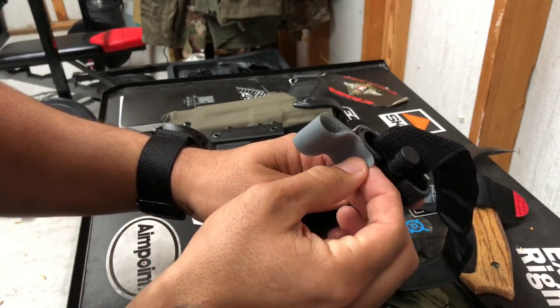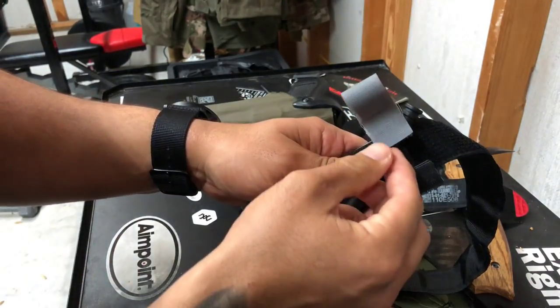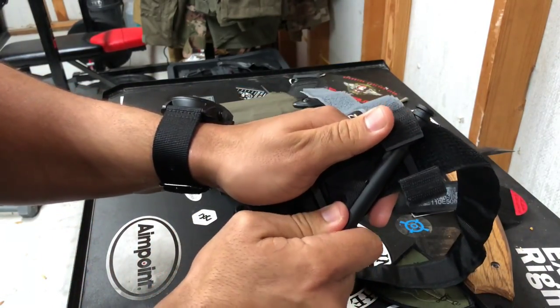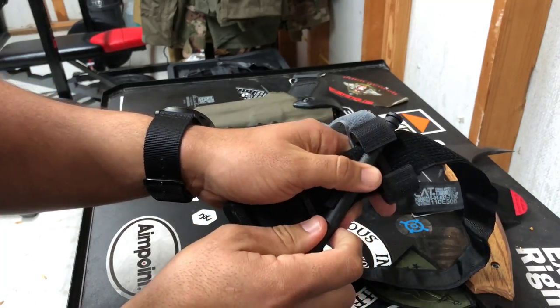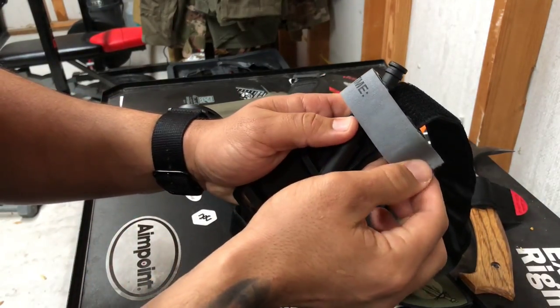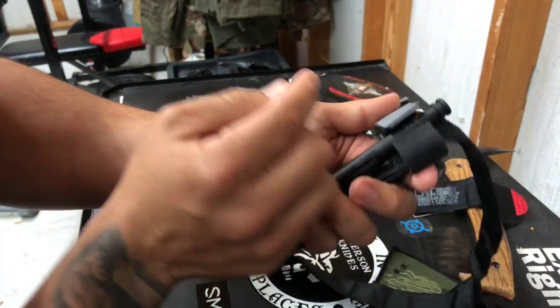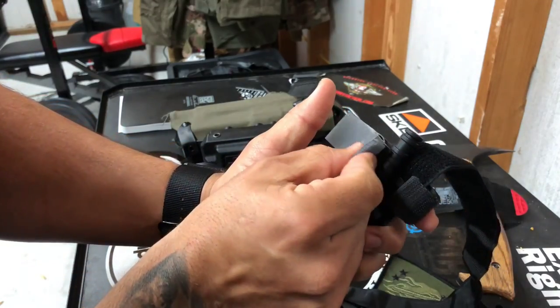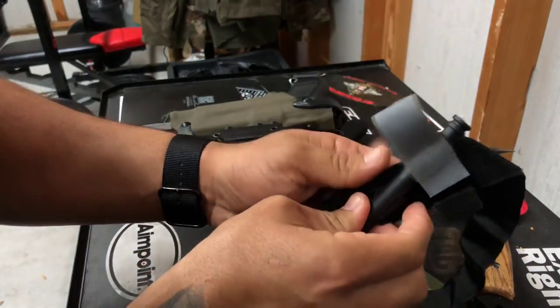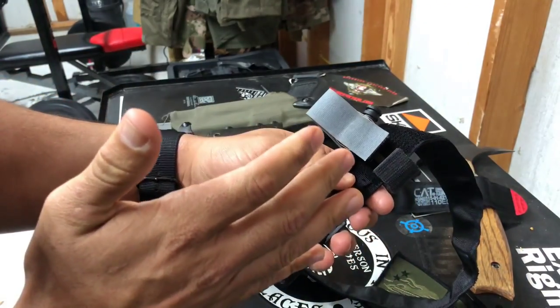Some people will say that if it's super tight, the chance of it falling off is minimal — but I don't want to take any chances whatsoever. I'm going to apply the tourniquet and take this and put it all the way across. Here's how I have mine set up: I have mine staged so it gives me a little bit of an area to actually grab and throw it over, but it's not so much that it's stuck on the other side. This can still go in and out easily.